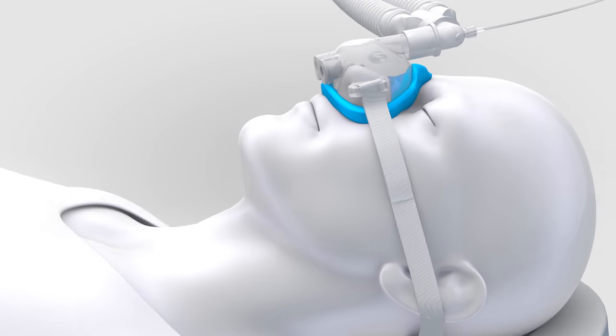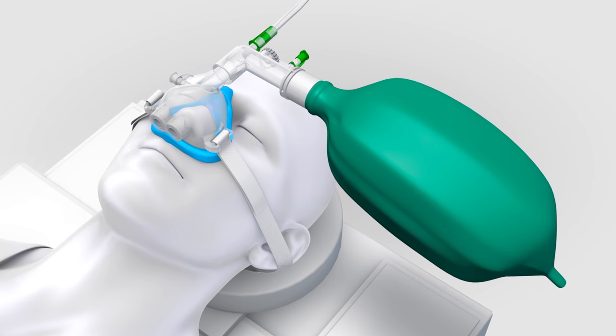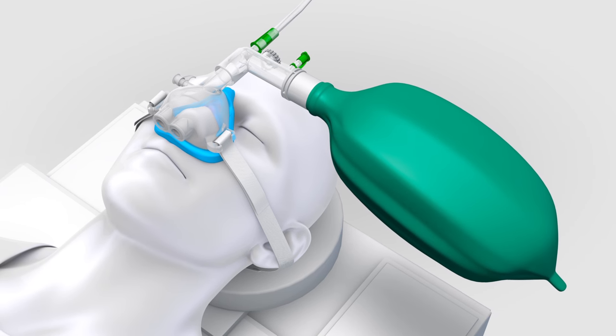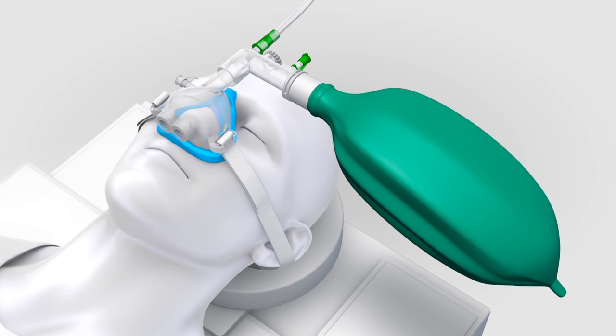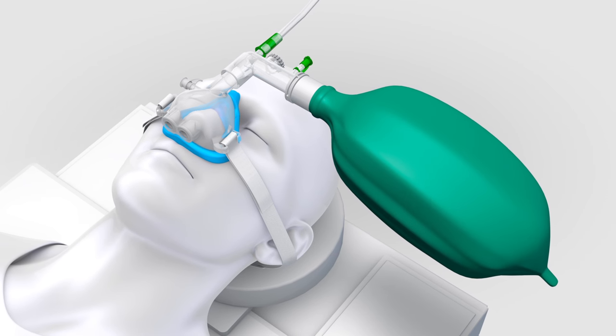For procedures outside the OR where an anesthesia machine is not available, the Supernova can connect to a hyperinflation bag and deliver a continuous flow of oxygen to the patient and maintain positive pressure throughout the procedure.